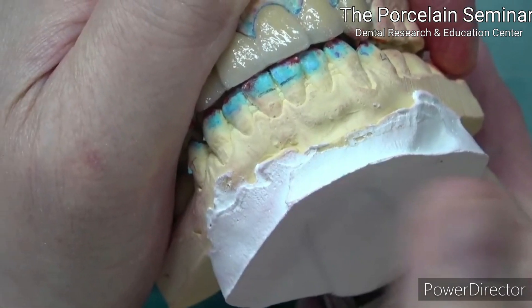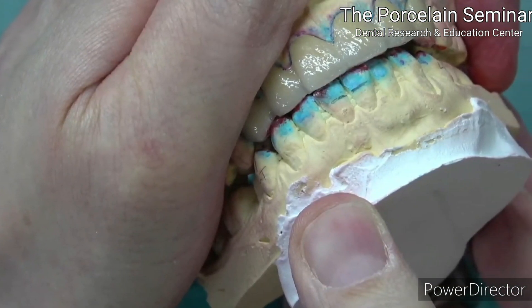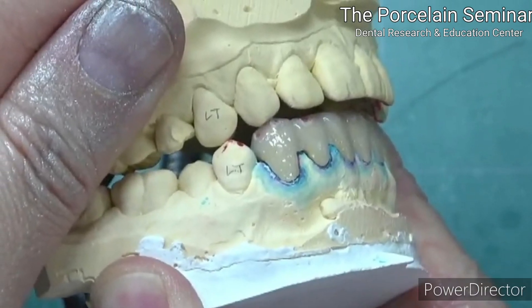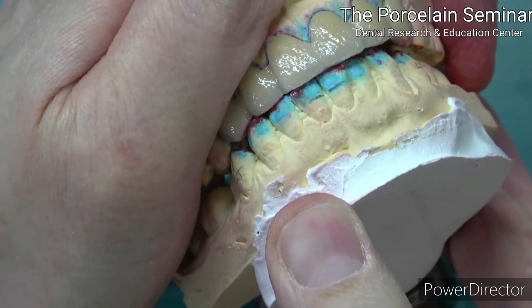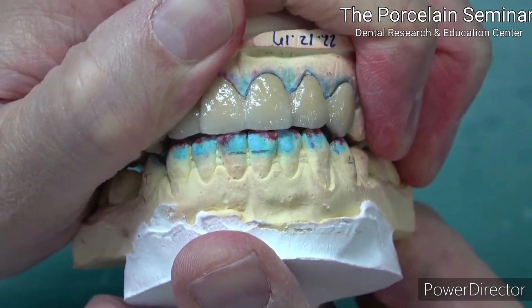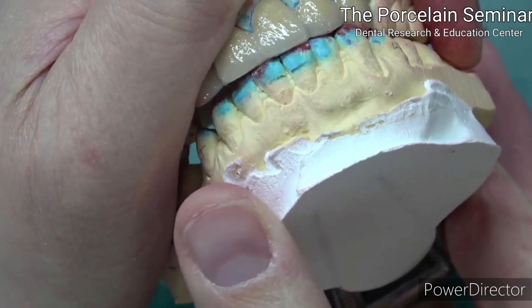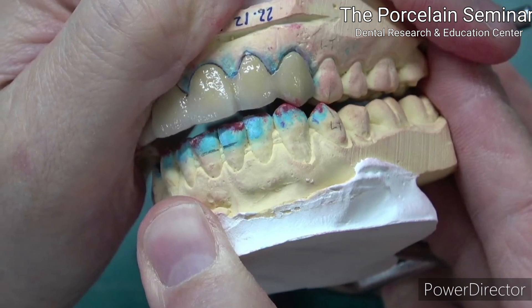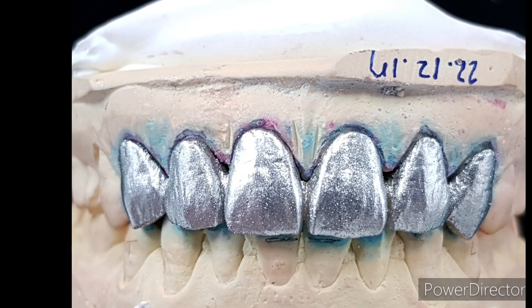전치교합 굉장히 어렵죠? 치과에서 환자 전치를 세팅했을 때 '지글지글 갈아보세요'라고 하는 교합조정. 이 '지글지글 갈아보세요'라는 교합조정에는 LT, LPT, FL 그리고 반대쪽 LPT, LT의 모든 교합이 포함되어 있는 것입니다. 이 교합을 각각 정확하게 절단해서 완성을 하고 났을 때 지글지글이 자연스러워지는 거지, '지글지글 하세요'라고 했을 때 각각의 교합이 완성되는 것이 아닙니다. (Anterior occlusion is very difficult, isn't it? When a dentist says 'grind side to side' during occlusal adjustment after setting anterior teeth, that 'grind side to side' instruction includes all occlusions: LT, LPT, FL, and the opposite LPT and LT. Only when each of these occlusions is precisely completed will the grinding motion become natural — the grinding motion itself does not complete each occlusion.)